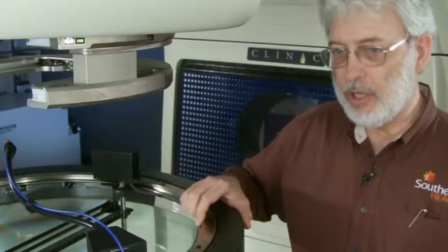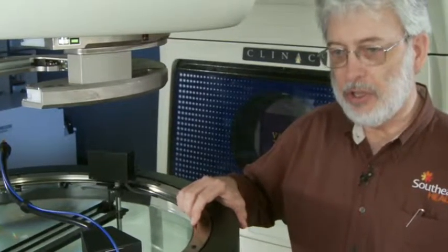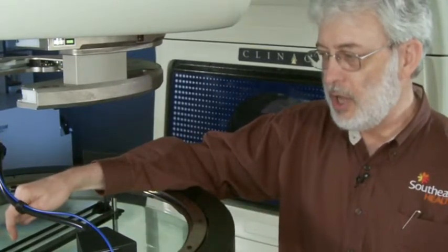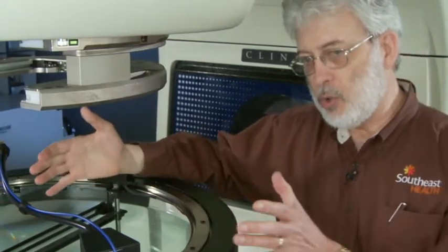Then with the beam on it scans a rectangular field in multiple directions. It finds the radiation isocenter and then the motors in the base move the whole tank to align to the radiation isocenter within a fraction of a millimeter and then it's ready for scanning.